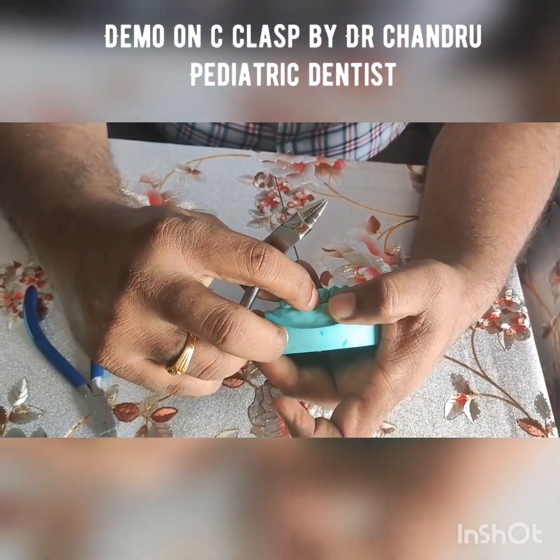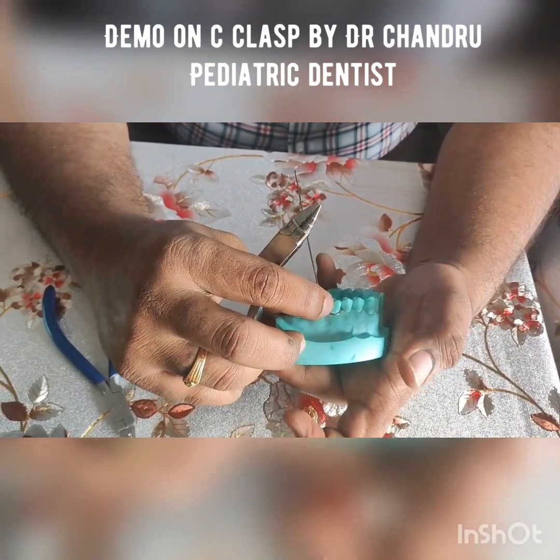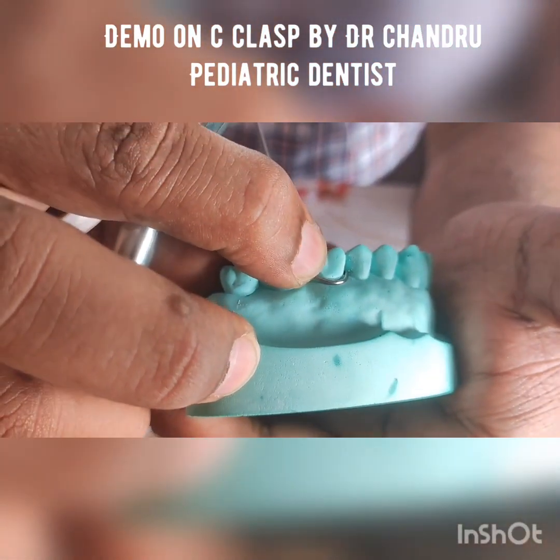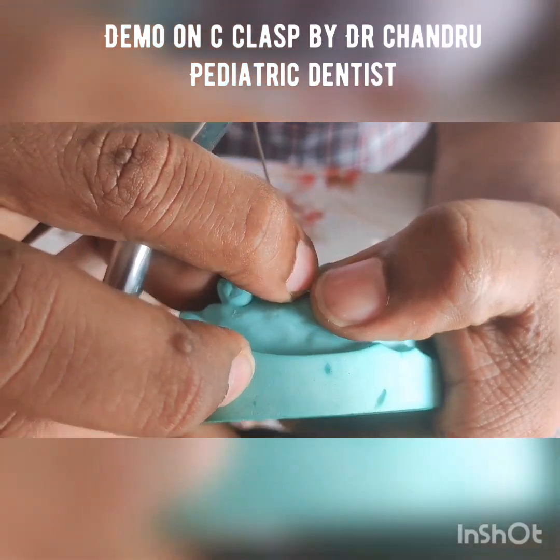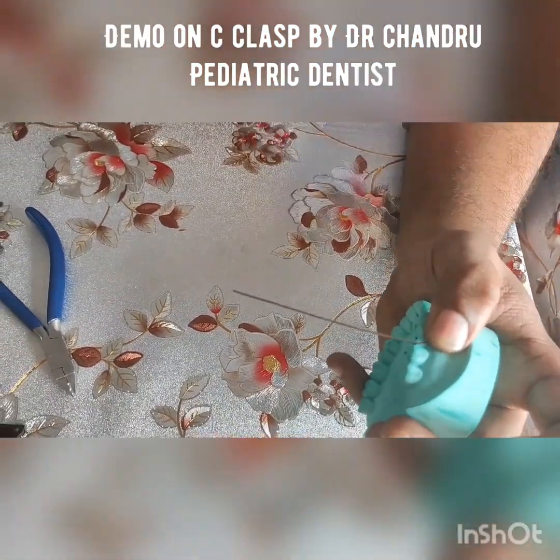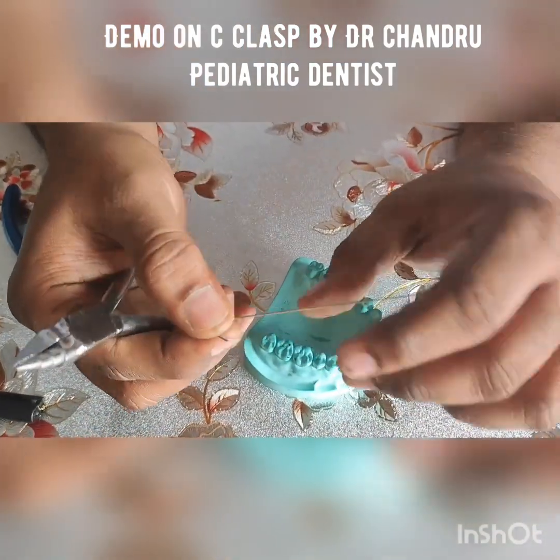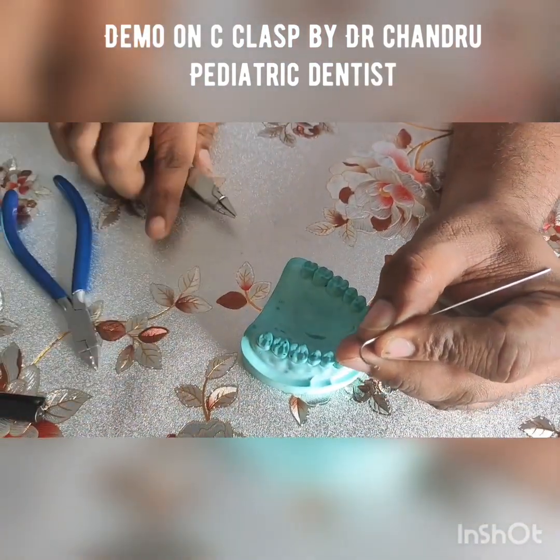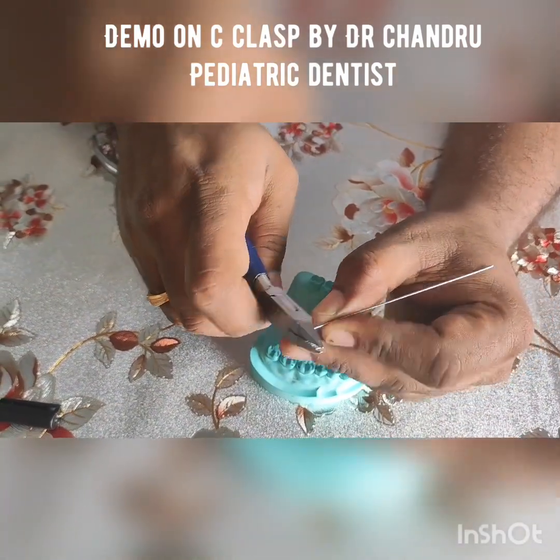Once the C-shaped design is achieved, see on the cast whether the C shape is approximating both the undercuts, that is the mesial undercut as well as the distal undercut. You can see that the wire is touching both the mesial as well as the distal undercut. Once the mesial and the distal undercuts have been touched, now take the wire from the cast. At the point of contact between the mesial as well as the distal undercut, hold the wire in such a way that it is in a straight line.